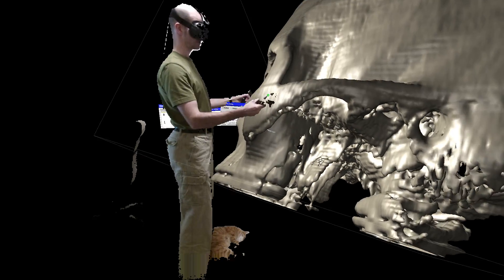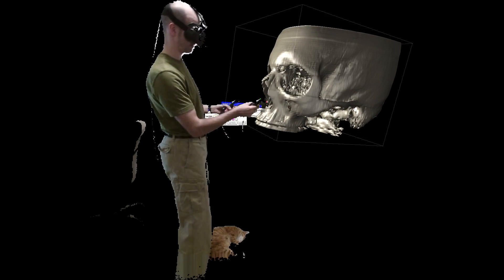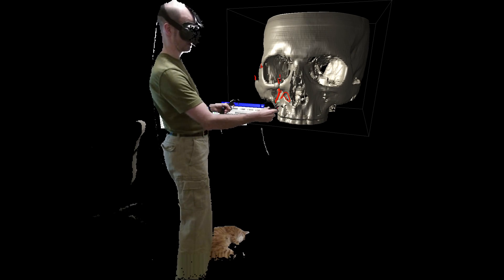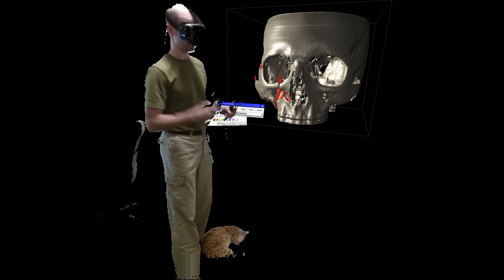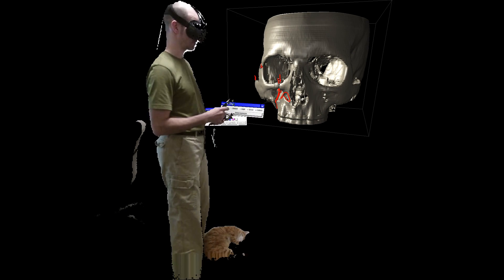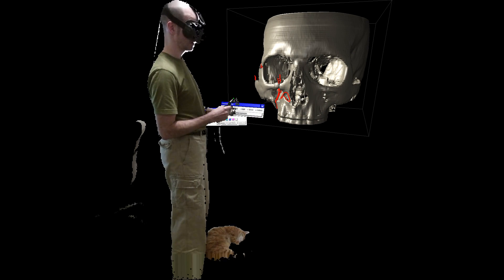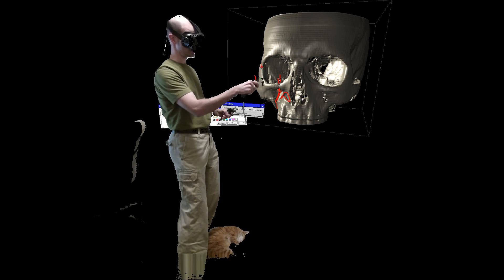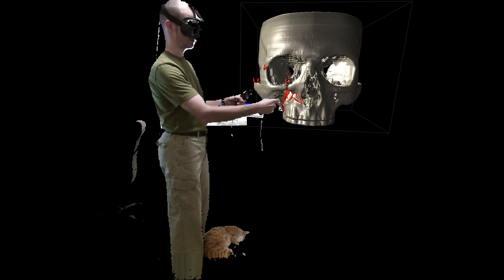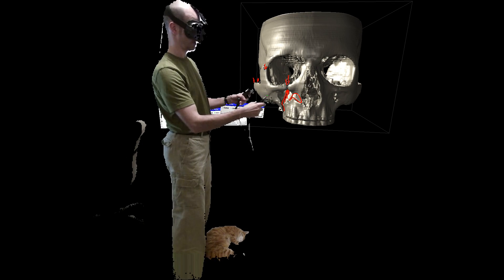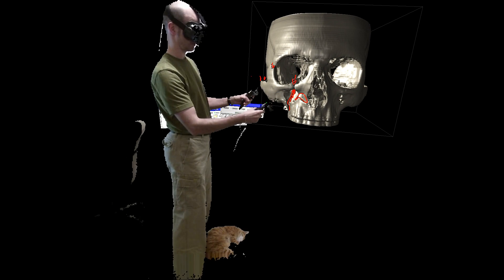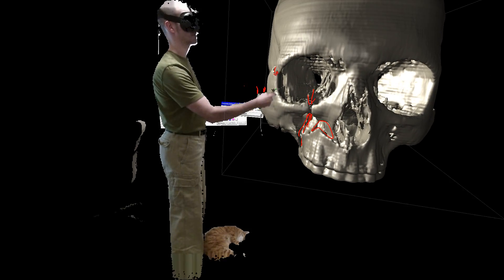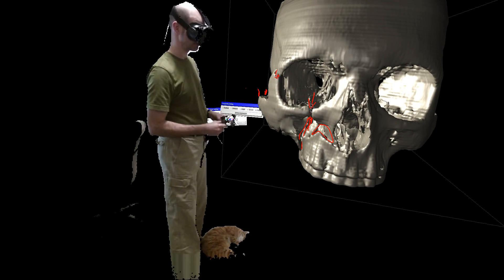So this is a pretty traumatic head injury. This is a teenager who fell over the handlebars of his mountain bike. So he had some significant surgery, but as far as I know, he's fine now. But yeah, I imagine it must have hurt pretty badly.